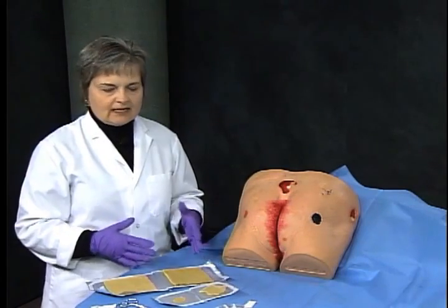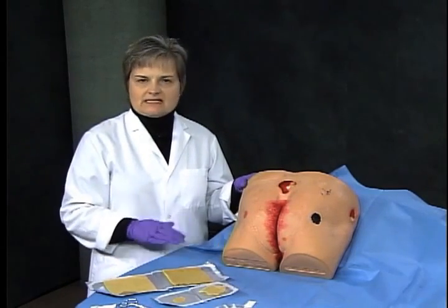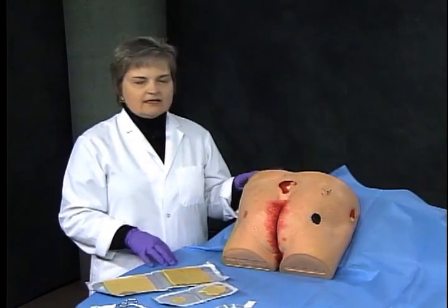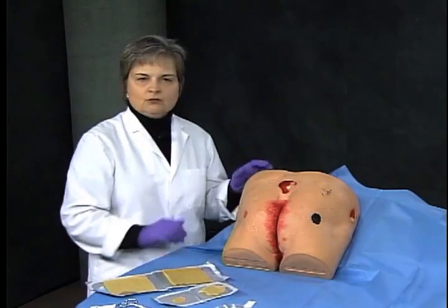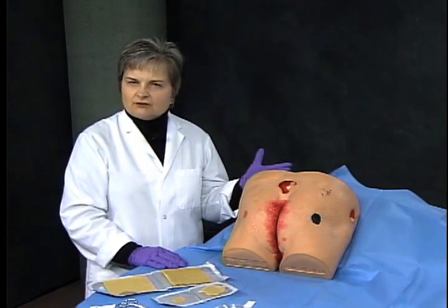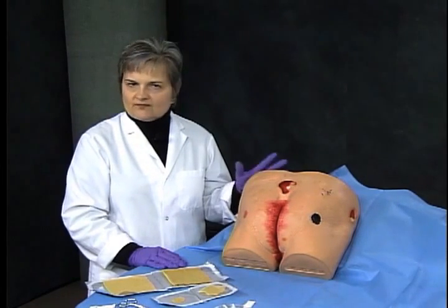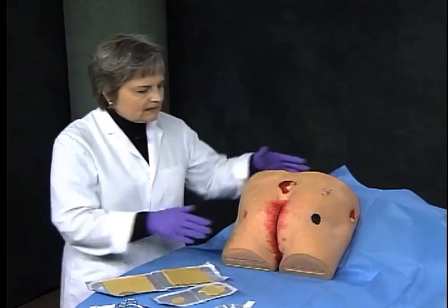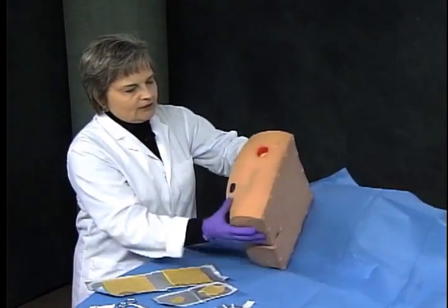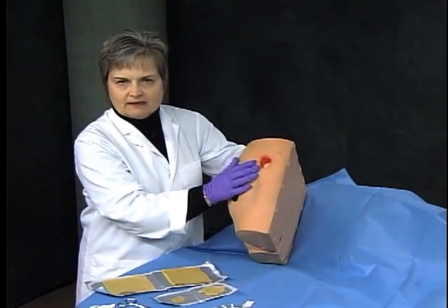you normally do, and the other thing you would do is you would select the most appropriate size of dressing to manage the wound that you are going to be attending to. So there's 5 different sizes of Tegaderm AG Mesh dressing, and it's pretty common for facilities to stock more than 1 size.